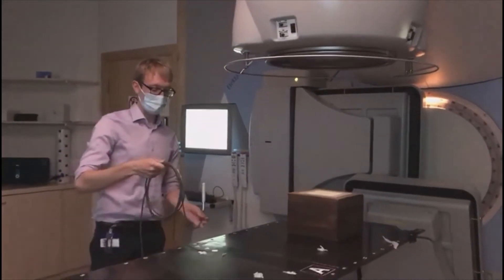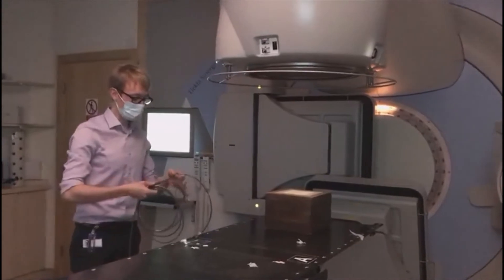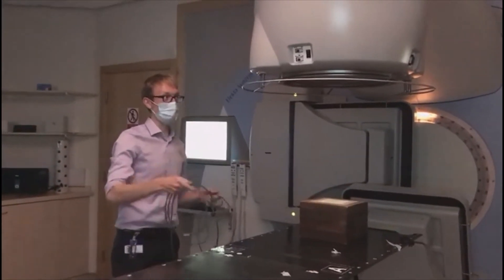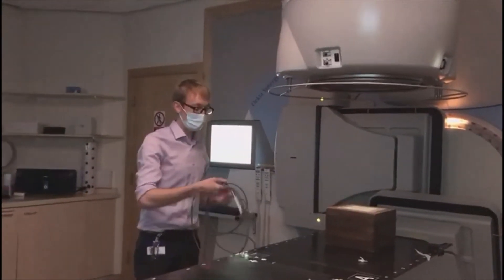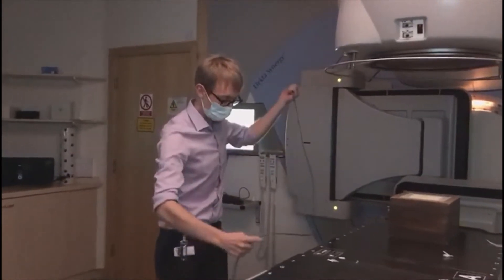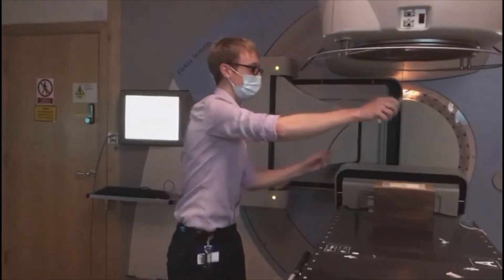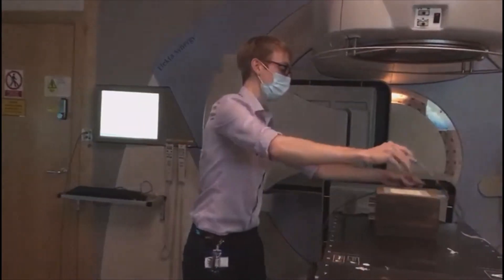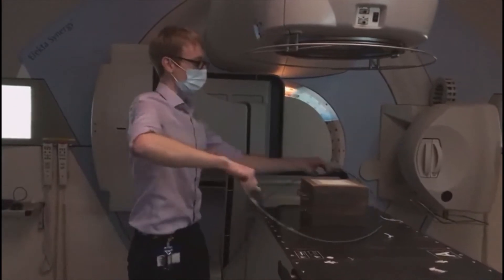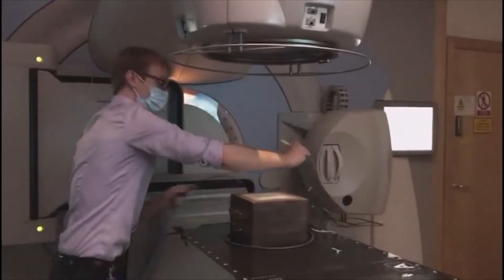The reason I want to use this is to check that the amount of radiation coming from the machine is what we think that it is, and that way we can ensure we're giving the right amount of dose to the patient so we know that we're treating them properly.